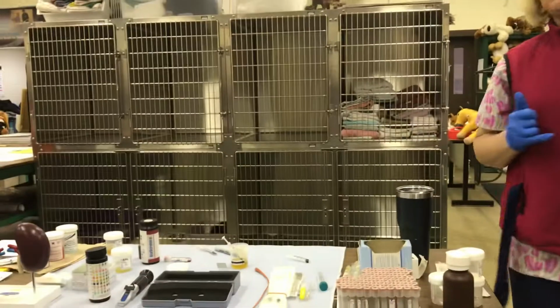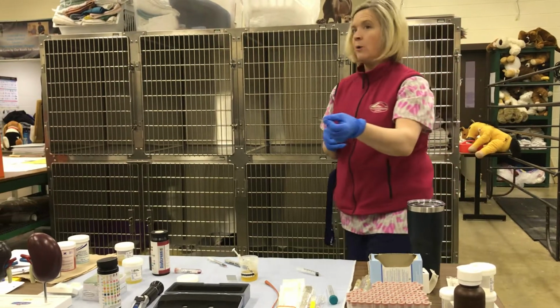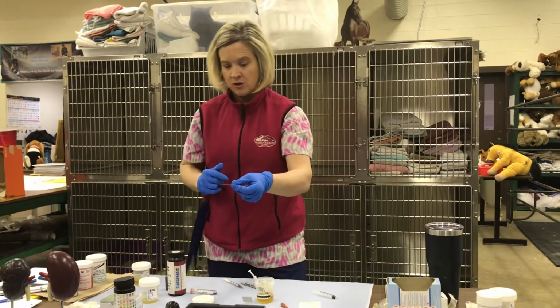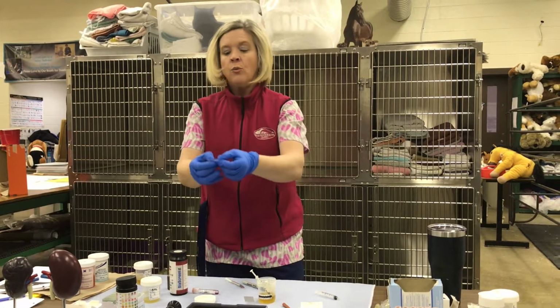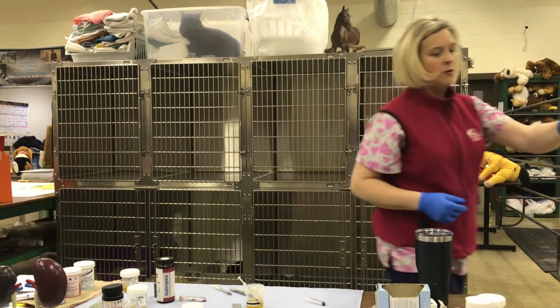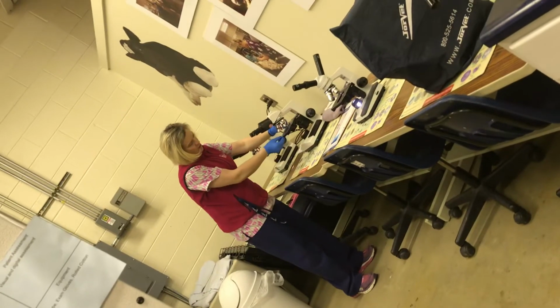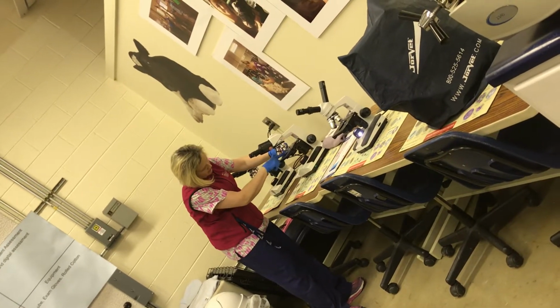So you guys as veterinary assistants, you will find out what your technician's preference is, or go ahead and make both if you're unsure, okay? Once we make this, you're gonna put it over, so this would go over to the microscope, okay? And then you would then place it on the stage, or you would then let your technician know that your sample is prepared.